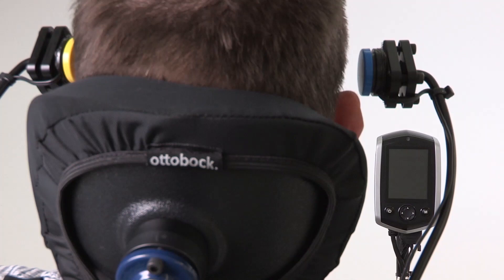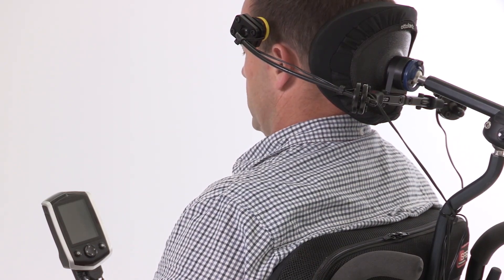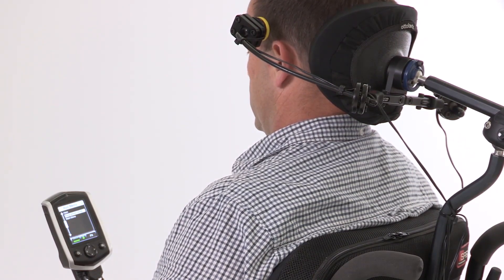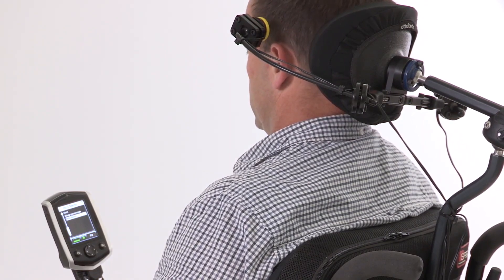The head switches are used for waking the chair up from sleep mode, driving the chair, moving the seating actuators, and putting the chair back into sleep mode.